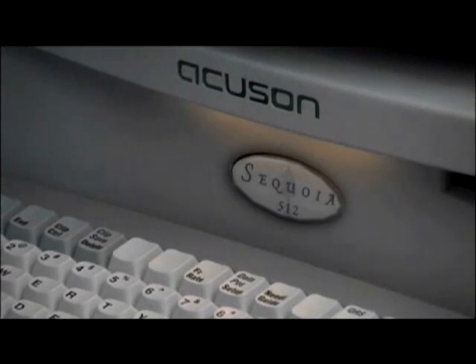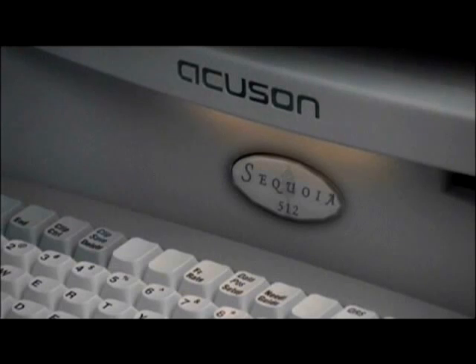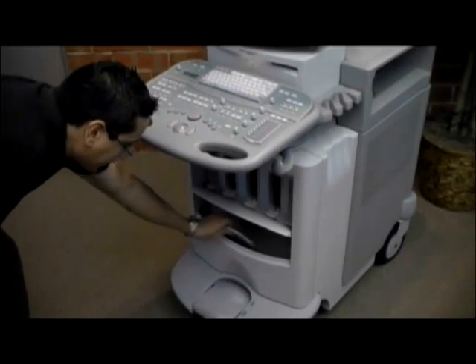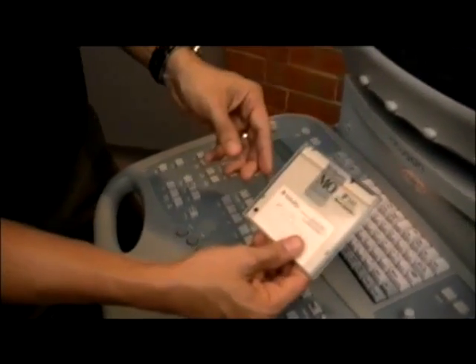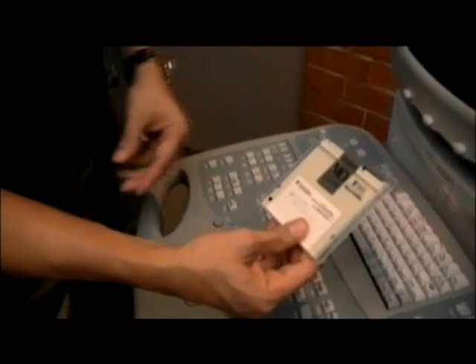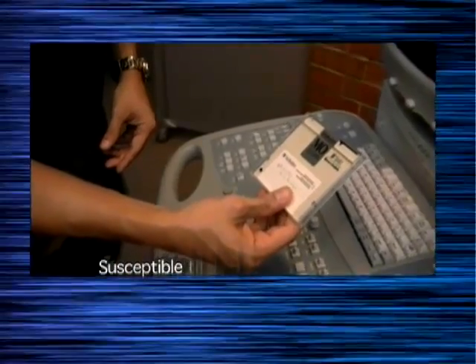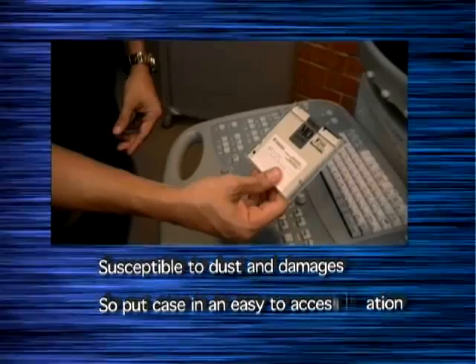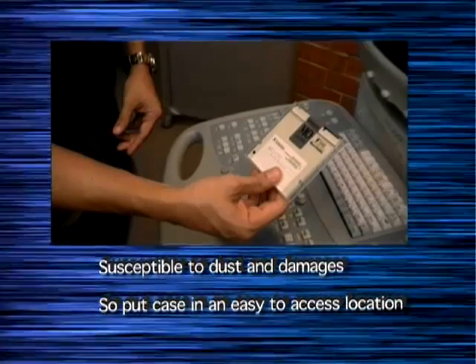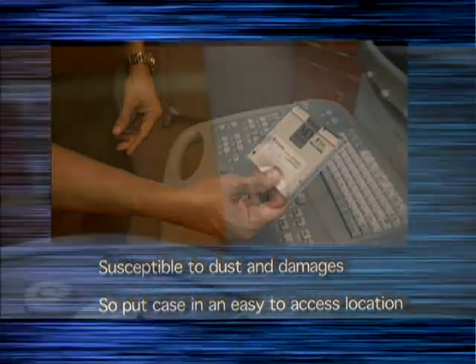A general software reload for the Accuson Sequoia. Check the lower front pocket for your system software backup disk. Be sure to maintain this disk in its plastic protective cover or case. They are susceptible to dust and damage, so put the case in an easy-to-access location so you will not forget to protect the disk once you have completed the reload.